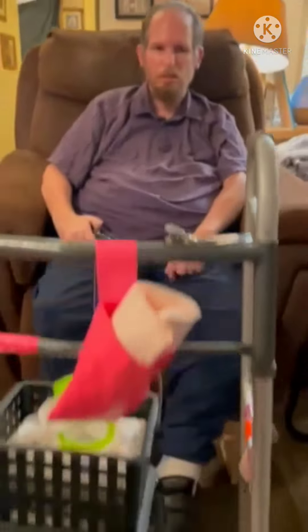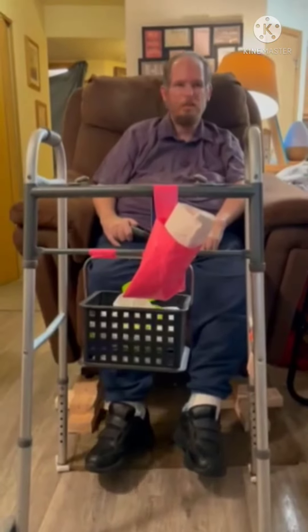So now I'm going to show you how to get out of the chair — hopefully this works just fine. Now I'll raise the chair up, which is no big deal.